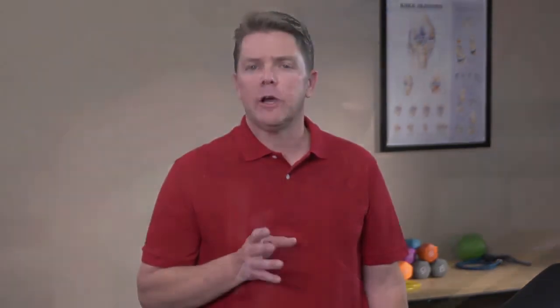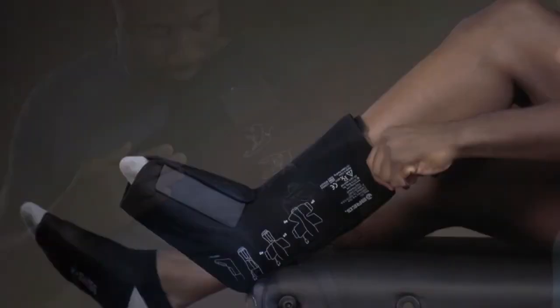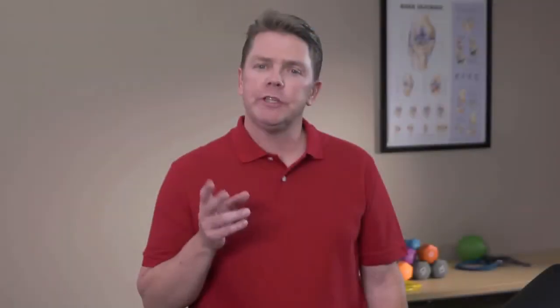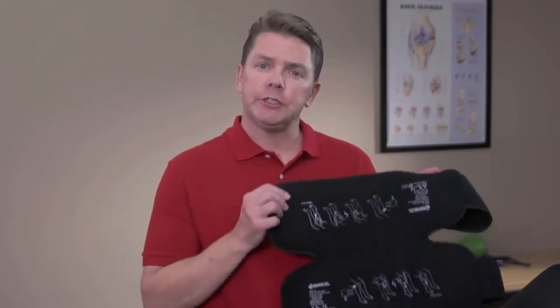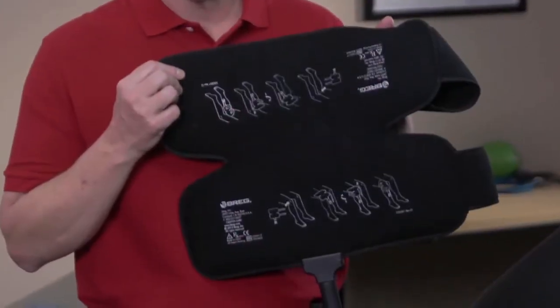There are several different thermal compression pads available to cover the knee, shoulder, foot, ankle, hip, and back. You will receive the pad applicable to your injury. Each pad has printed instructions on the pad and separate application videos available.